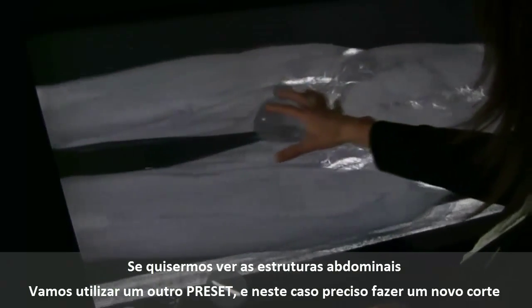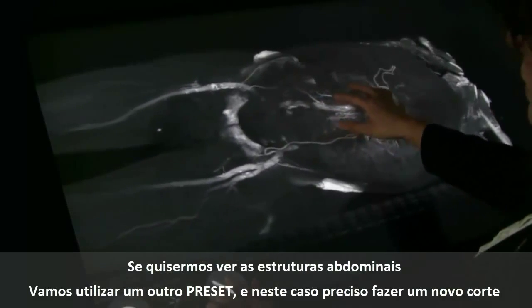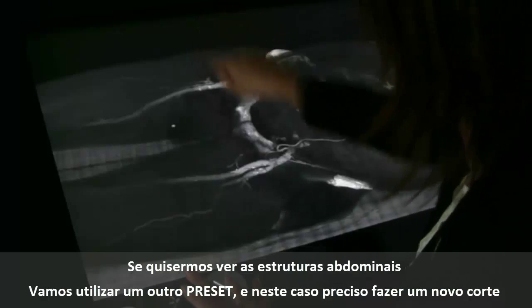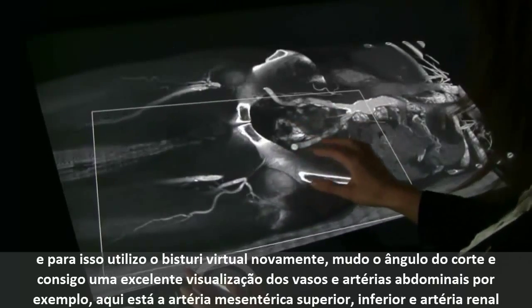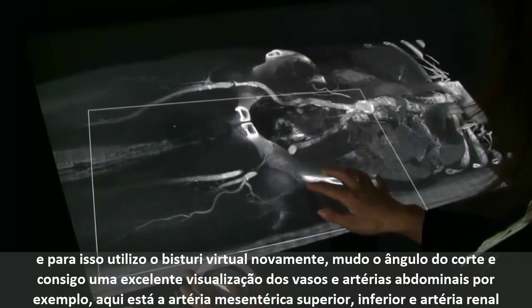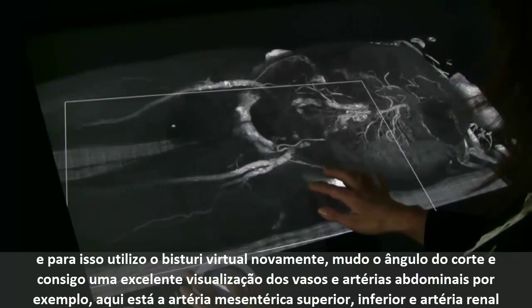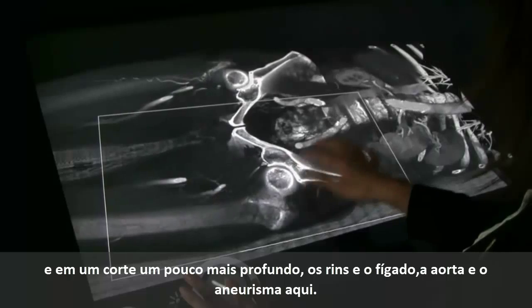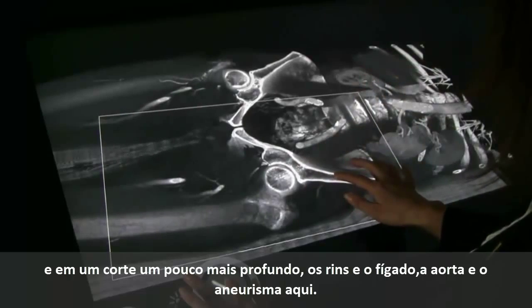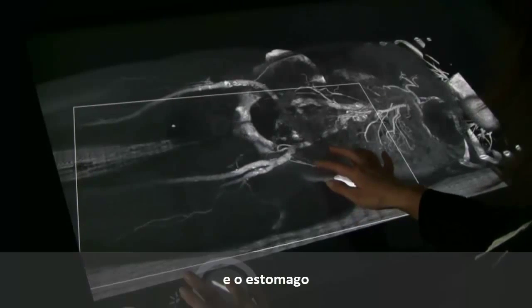In order to see the abdominal organs, I can change to another preset. And for this case, I need to cut into the volume with a clip plane again. Now I have a really good overview over the small vessels that are in the abdomen. For instance, here you see the superior and inferior mesenteric arteries. You see the renal arteries if I cut into the volume a little deeper here. You see the kidneys. You see the liver. You see the aorta. You see the aneurysm here. And you see the stomach.